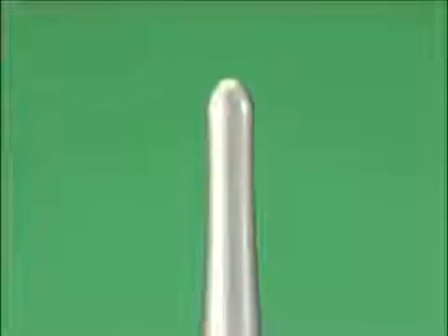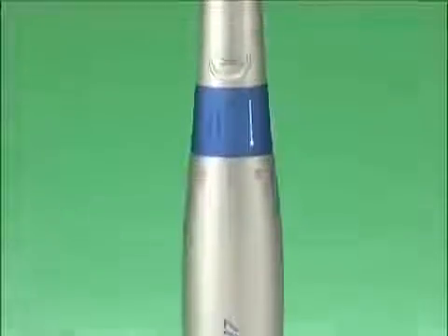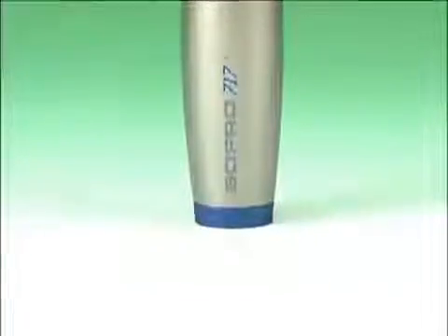There are fewer errors with all the systems when using colour charts, giving priority to luminosity, then to saturation and to chromatic key, i.e. the latest colour chart generation. Therefore, the results of the Sopro 717 intraoral camera are more than satisfactory in terms of natural tooth shade selection, and the camera with its Sopro shade concept is one of the modern ways of colour teeth selection.